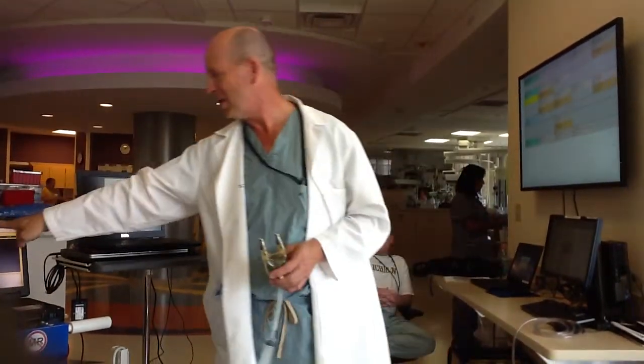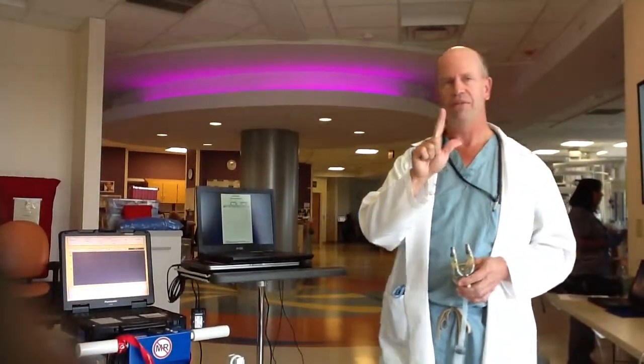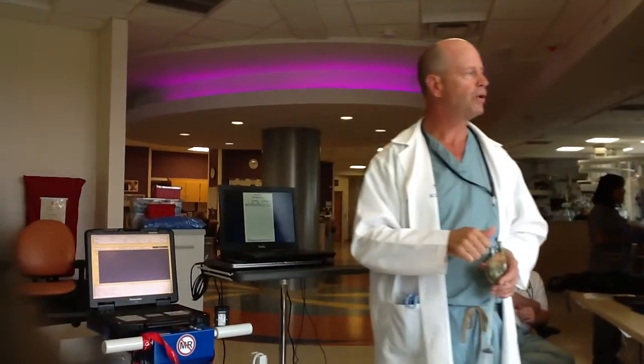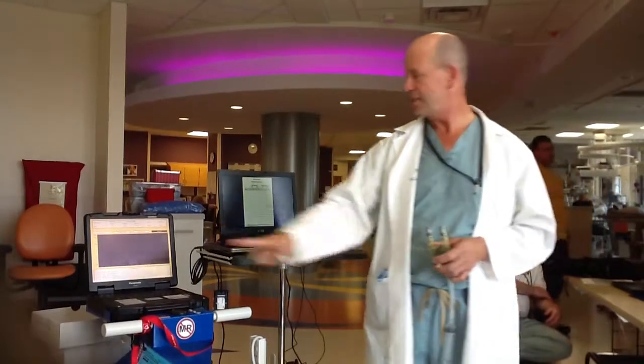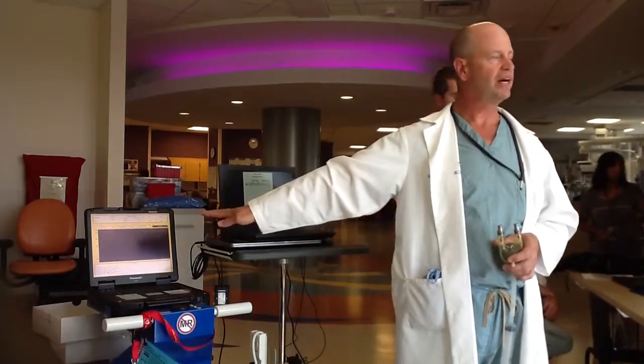You see that right there. The diastolic or the vacuum during diastole — right there. The pump rate, where do we see that? It's right there too, and the percent systole is right there. So those numbers can come right from there.